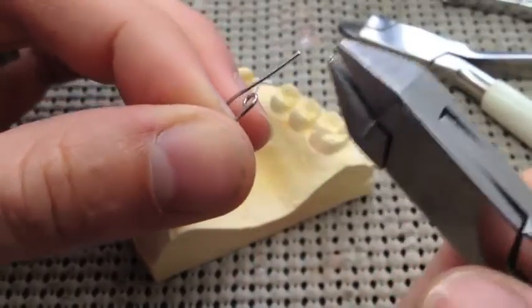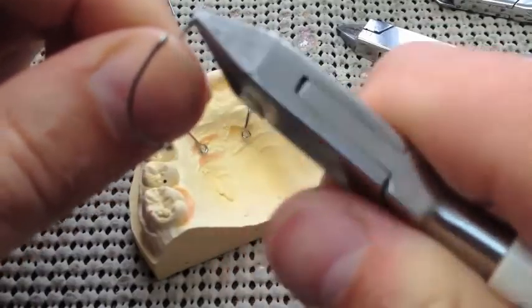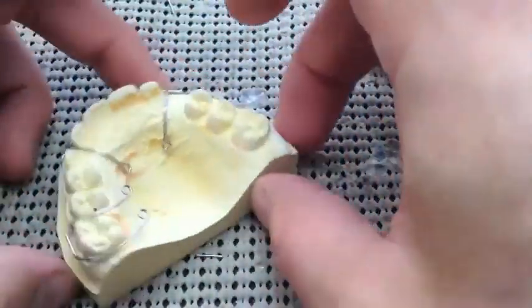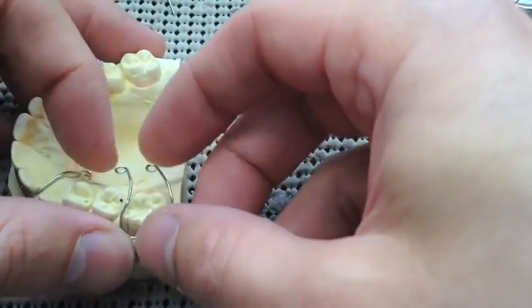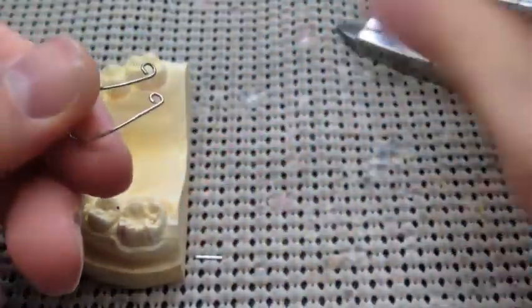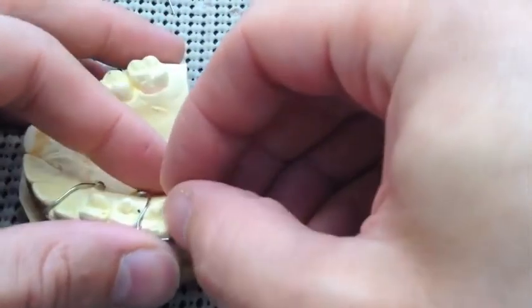I always like putting these circle tags. You can do whatever you want — zig-zag back and forth, or a right-angle bend forward — it all works as long as there's some sort of mechanical retention. If it's straight, it's just going to pull straight out like a popsicle stick. So you've got to have a little something in there. I usually make it my own by putting these circles in there. That way I know my wire bending — if a retainer comes back two years later, I can look at it and go, 'Oh yeah, I bent that,' so I'll uphold my warranty.